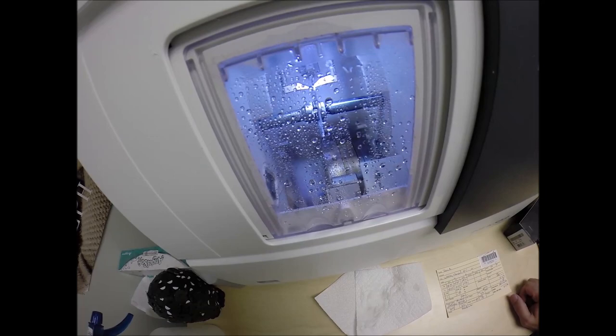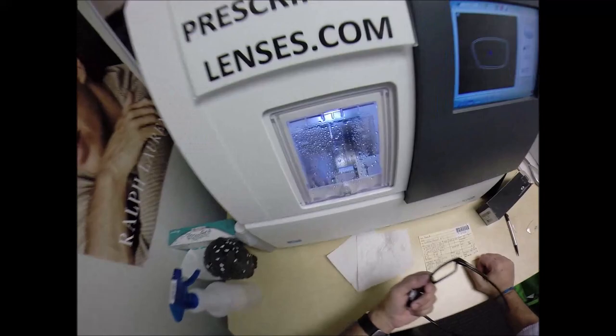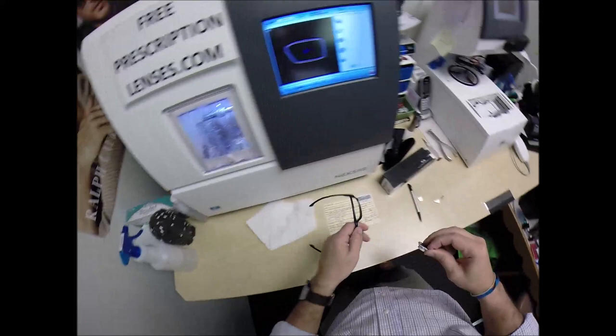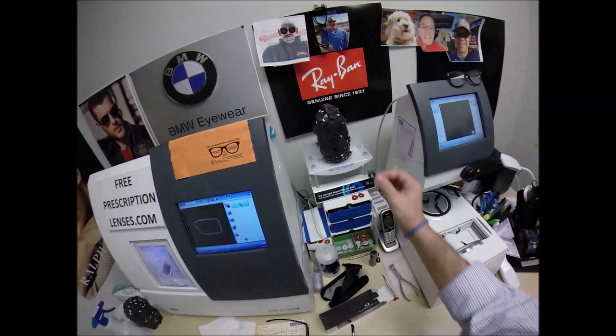And that pops in there so easily but I don't want if it were too large, I don't want to scratch the inner surface of the lens. This is your frame, I am going to protect it with your life or my life. Actually I like protecting it with your life better, I'd be willing to bet your life on, I'm not going to bet mine. Alright so flip that over to L. The door will close, the clamp will shut, the lens will be traced by two very stylish styluses. Now it's tracing the shape of the left side of the frame.